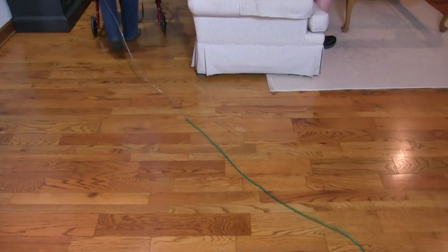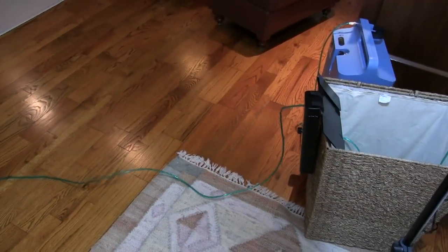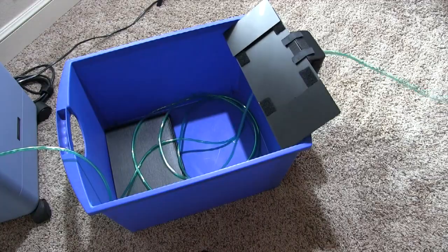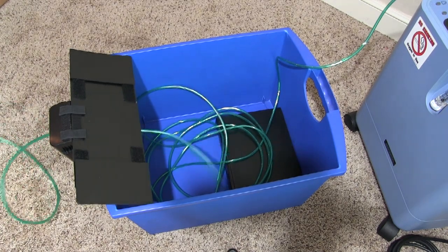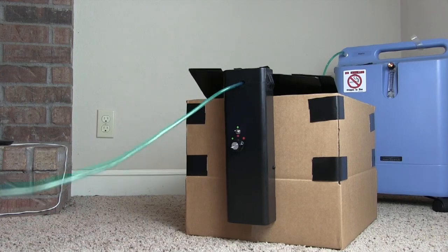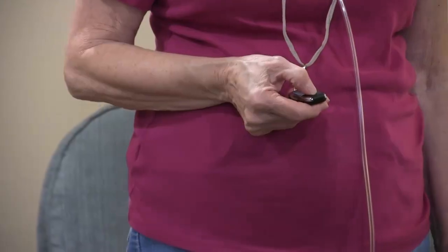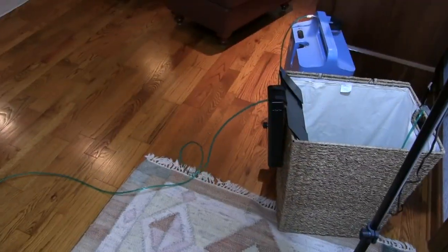The OTCR works with a wide variety of containers — everything from wicker baskets to plastic cargo crates. It even works with a cardboard box. The Oxytube Control Remote can help any body, and it can be used with practically any container.